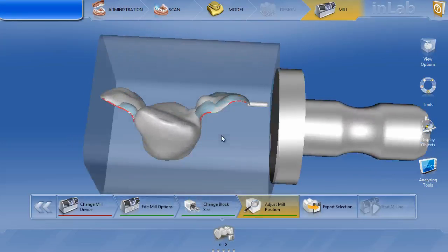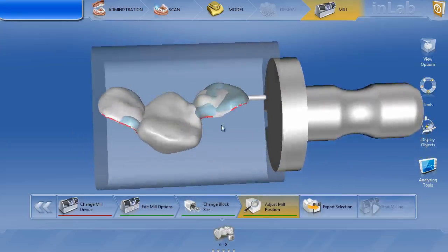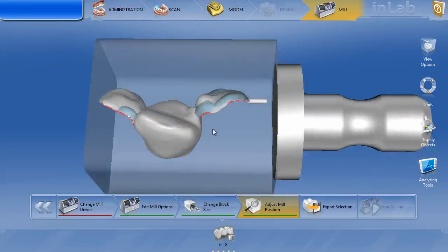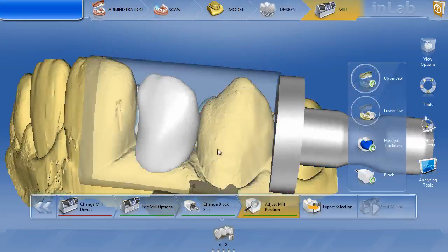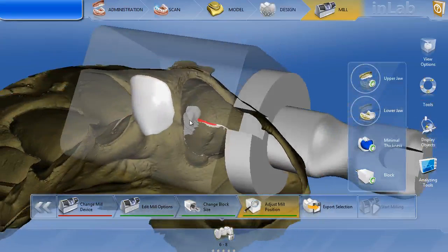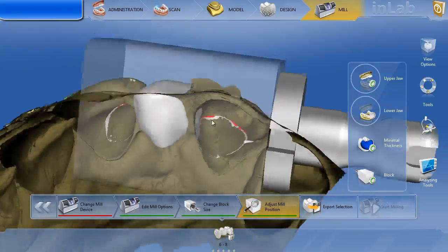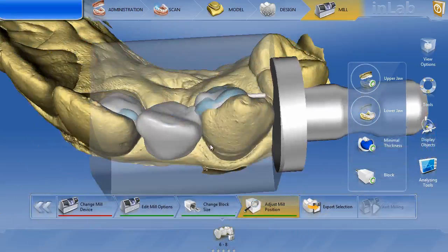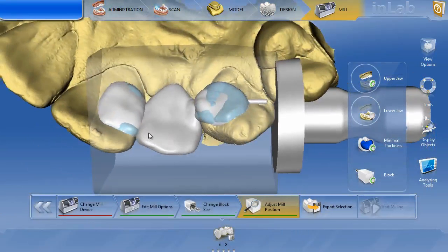You've got a number of different issues here. You can see this wing is pretty thin in that connector. We've got some minimal thickness issues over here on the wing on tooth number six. And if I turn on the display options for the upper jaw and look underneath, I've got some definite binding issues that are outside the actual areas of the connector. You've got a couple different issues, and I'm sure you've got some binding over here where the sprue is at.